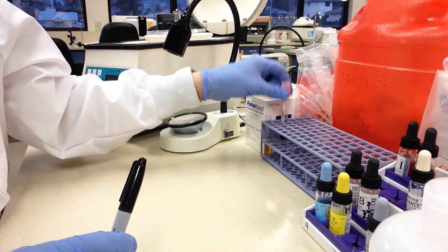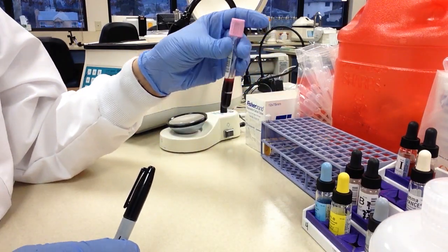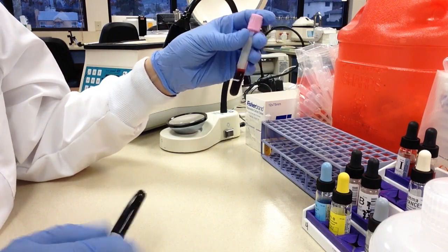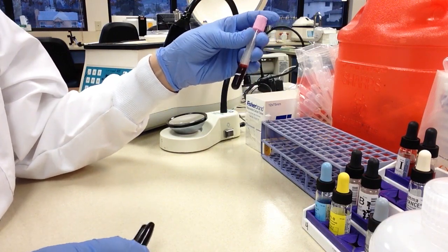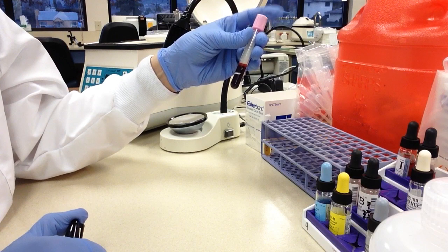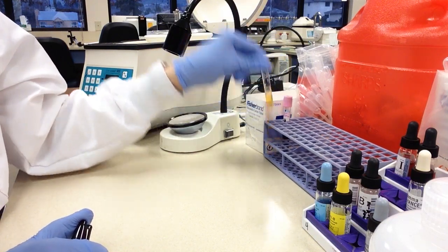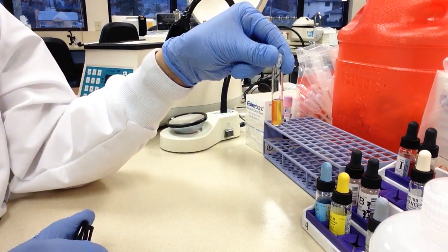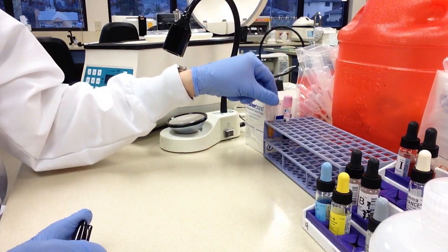So the patient had a pink purple EDTA tube drawn and what I did was I spun the tube down and then I pulled off the plasma which I put in a separate glass test tube.